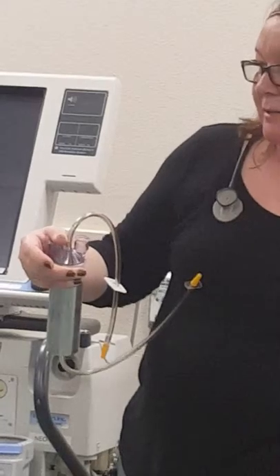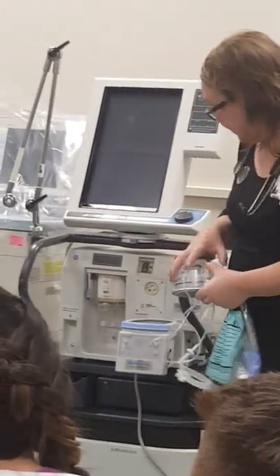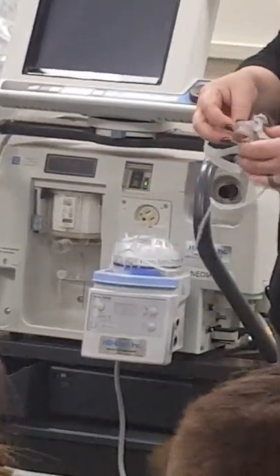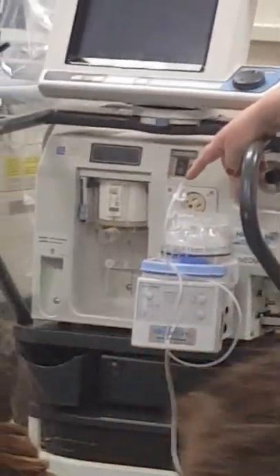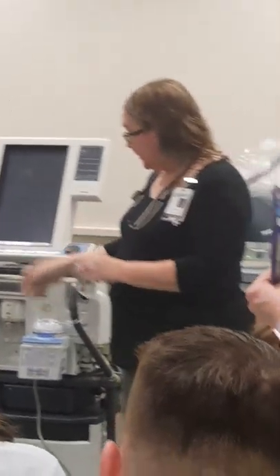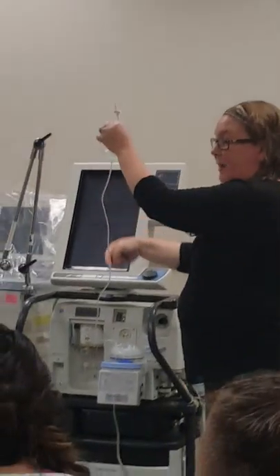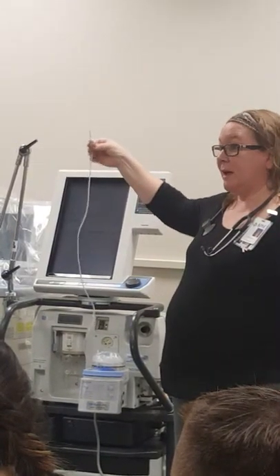Both containers serve the same purpose — they just work on different humidifiers. This one works on the round humidifier, and the other works on what's called a concha humidifier. All you do is push this down and it slides in. This cap is really for storage, but in the clinical setting you'd just leave it on until you're ready to put it on a patient. This is an auto-feed system — once it's in and you're ready for a patient, you poke it into a water bag and the water drains in automatically.